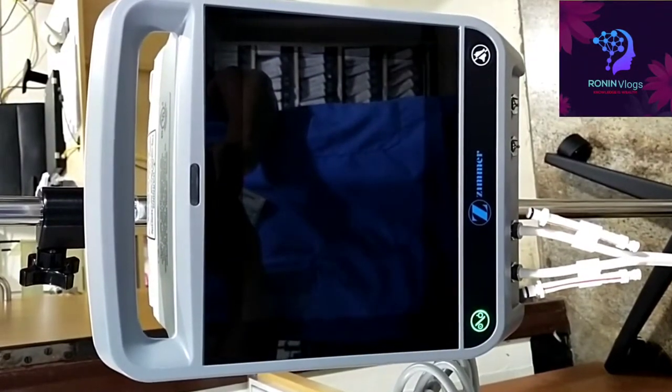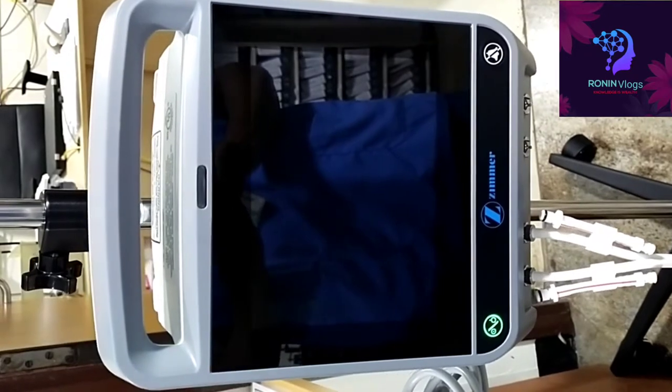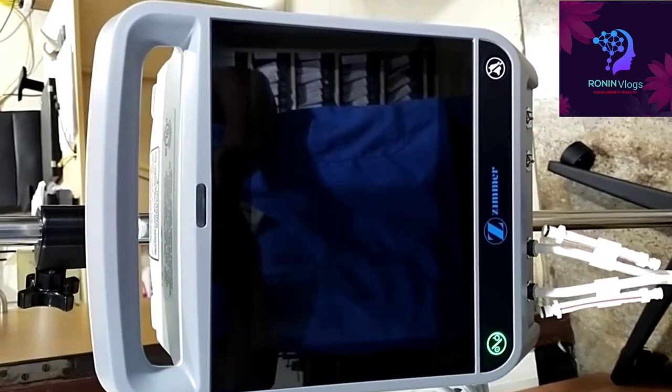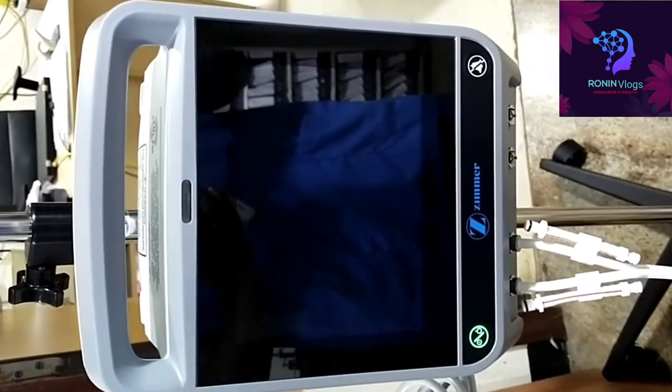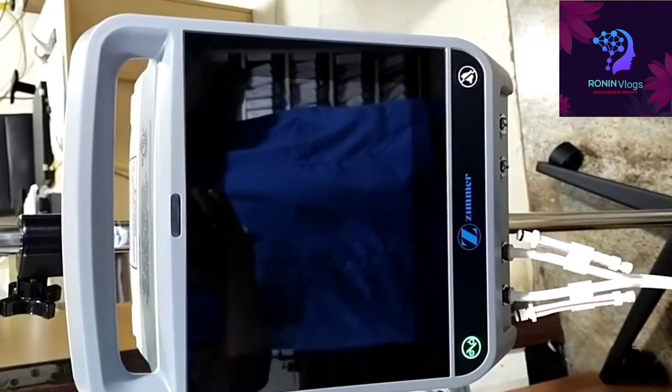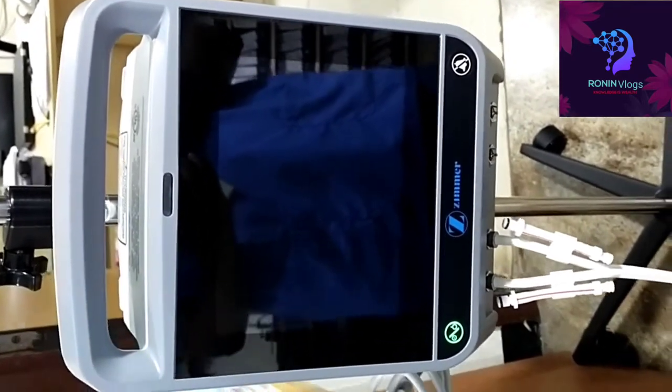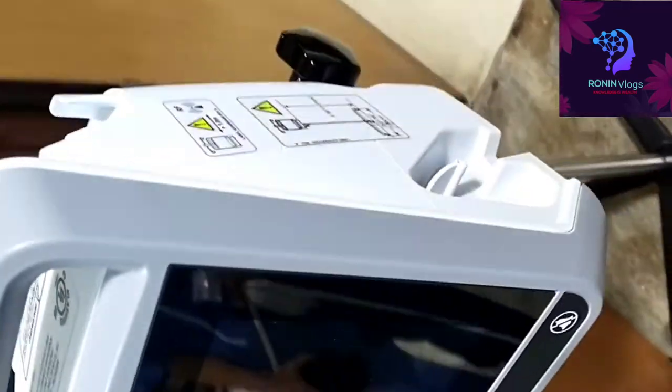Hello friends, welcome to my YouTube channel. Today in this video, I am going to show the tourniquet. Company name is Zimmer, model is 4000 TS.